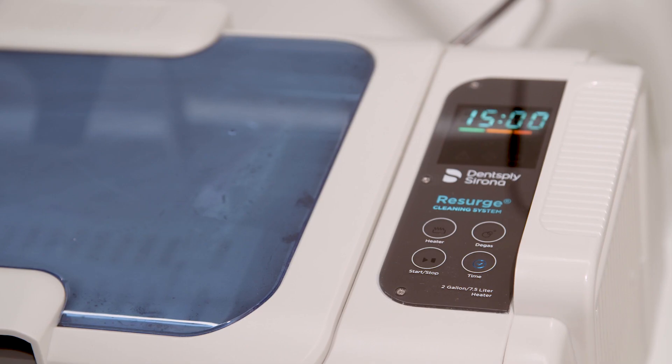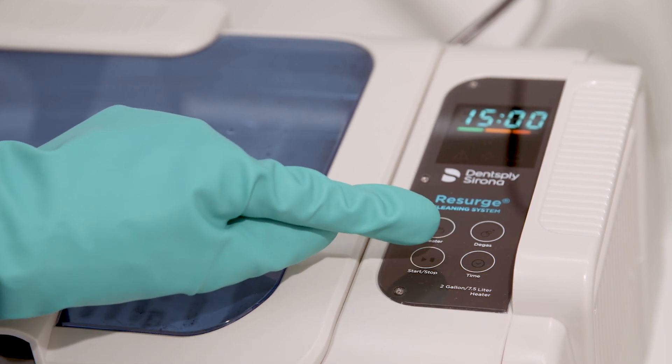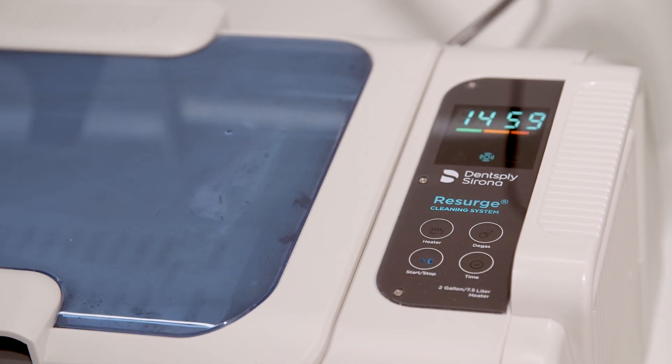Set the desired time by pressing the time button. Then press the start-stop button twice to begin the cleaning cycle.